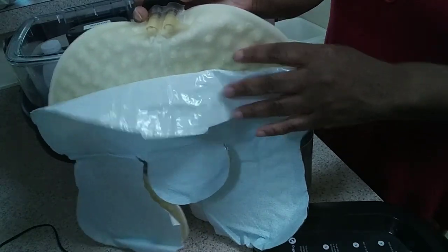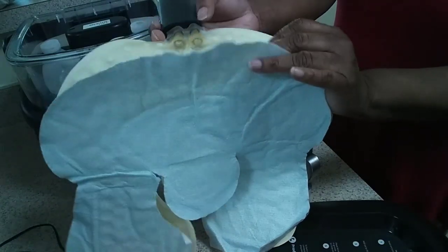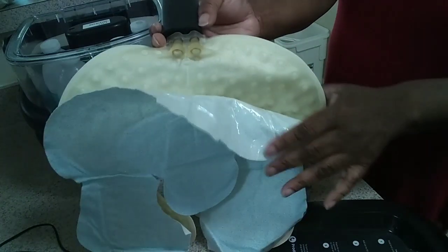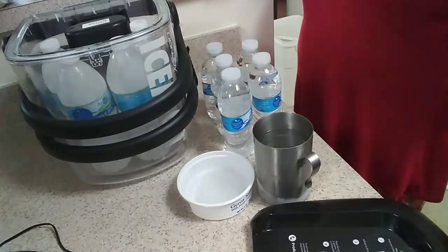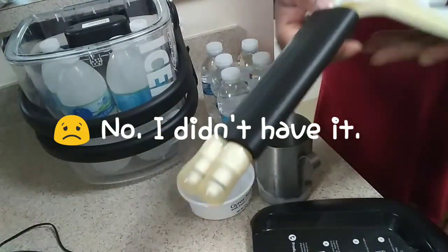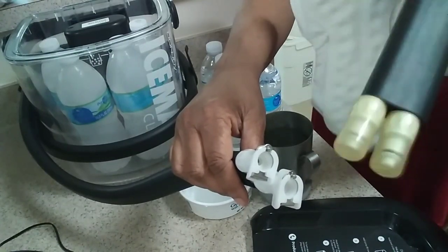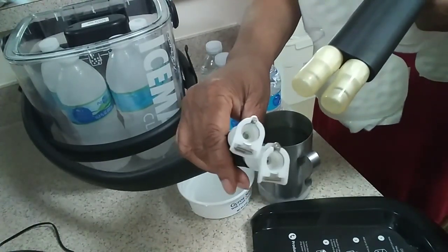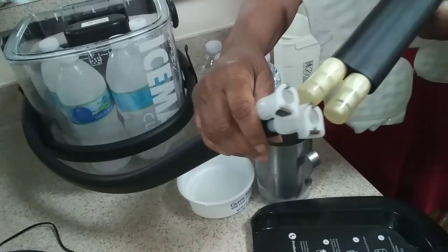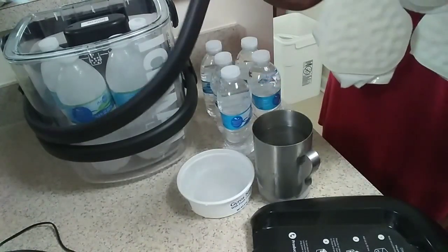This is the thing where the water goes through and keeps the area nice and cold. The water will come inside of these tubings right here and fill this thing up and it'd be cold. This is inside of his bandages where his knee was operated on, and these things stick out and connect to the machine. You just had to snap them open and shut, and when not in use, put these little rubber caps over them so water wasn't dripping out all over his bed.